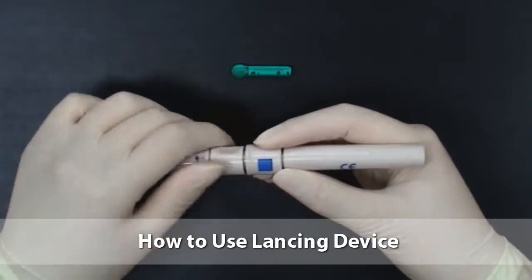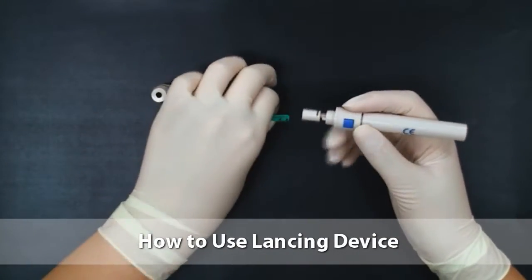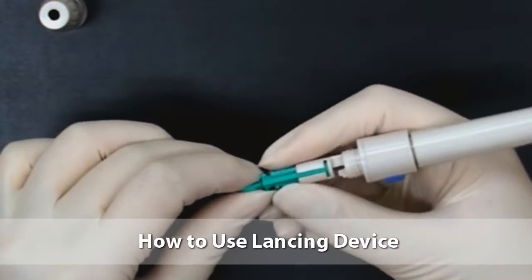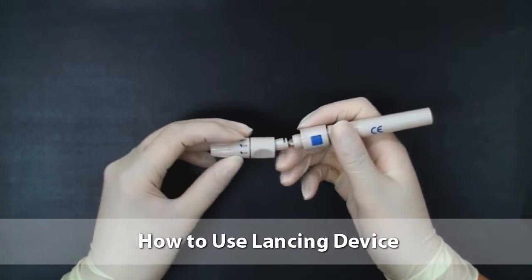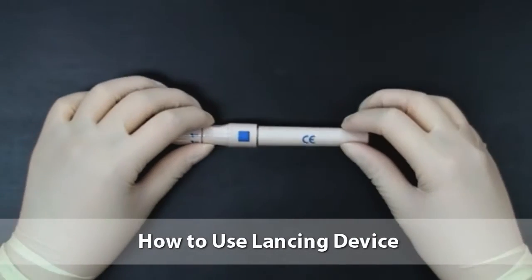If you have a lancing device, assemble the lancet with the lancing device. Unscrew the cap from the lancing device body. Insert the lancet into the lancing device holder and push down firmly until it is fully seated. Twist the lancet protective disc until it separates from the lancet. Screw the cap onto the lancing device body.